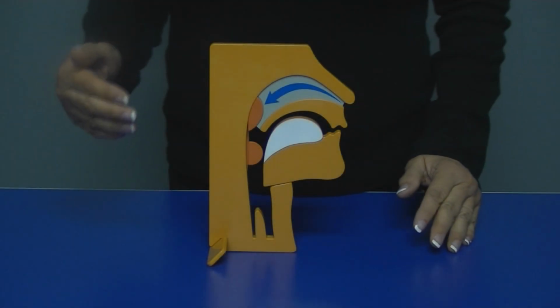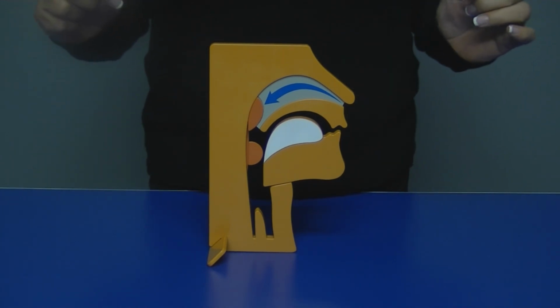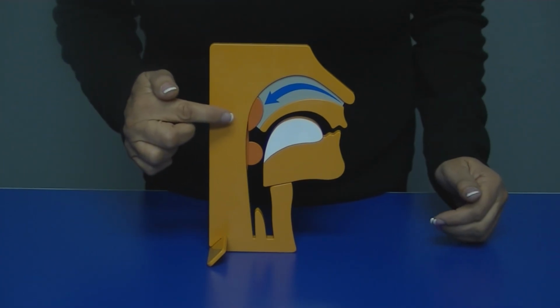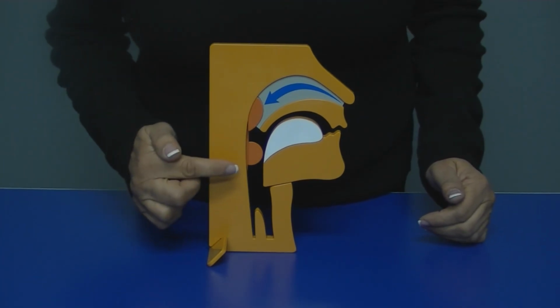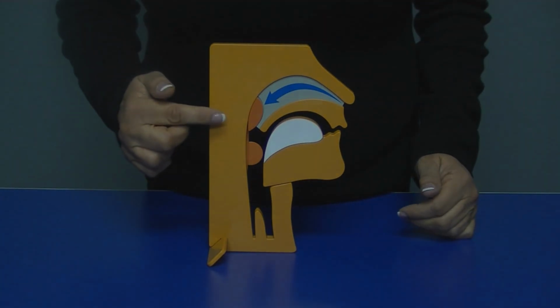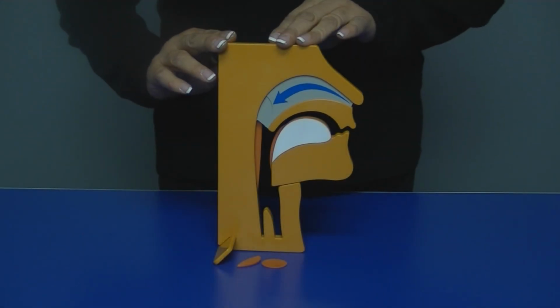If the patient has been diagnosed with chronic snoring and obstructive sleep apnea, the contributors can also be hypertrophy of the adenoids as well as the tonsils, which you can clearly show the patient with these 2 removable parts. The referring physician has already agreed that the optimal treatment will be an oral appliance.